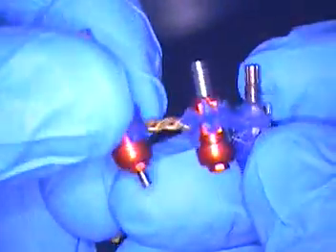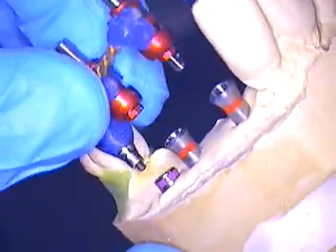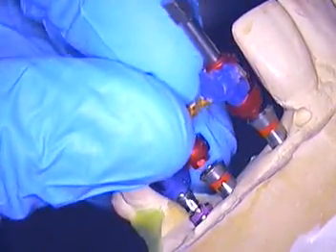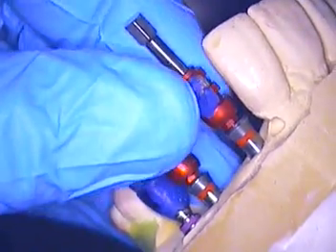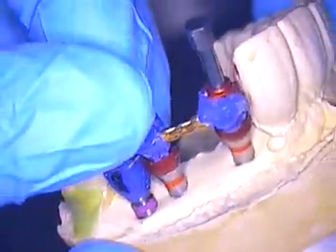Manipulating this and then literally just taking my hand and pulling it — tearing it out of there — and then saying to myself, well, will this ever even fit the model again? Seeing is believing. So I put all the pieces together and played around with it, and then lo and behold, it just dropped in. No rocking. Still fits the same way on the model. Tighten it all down.